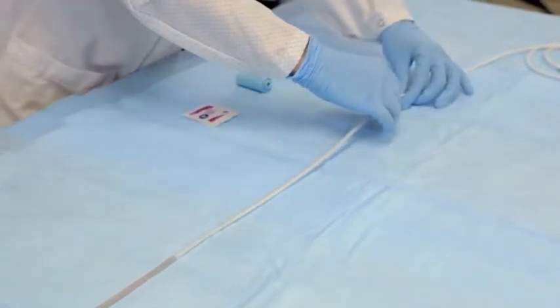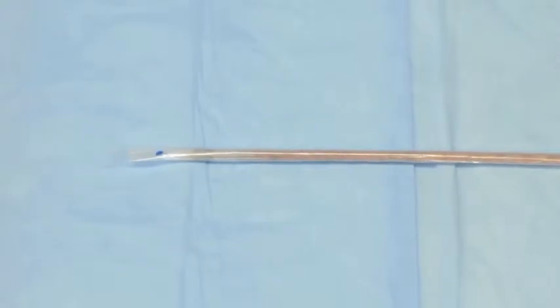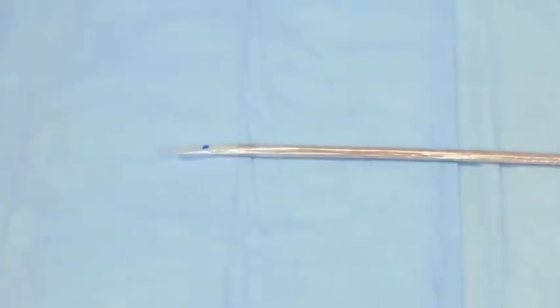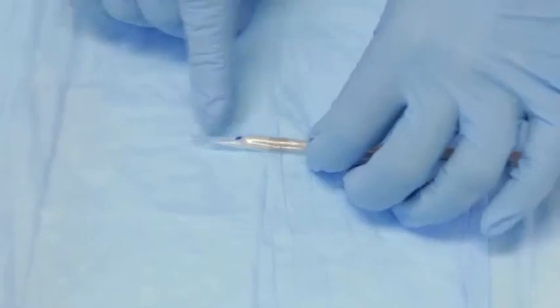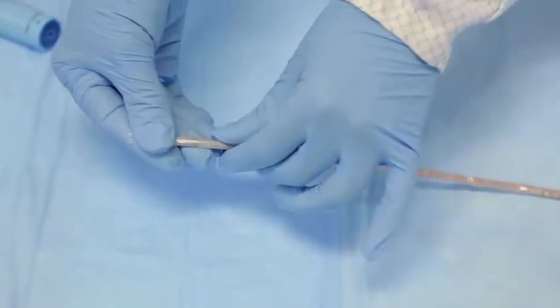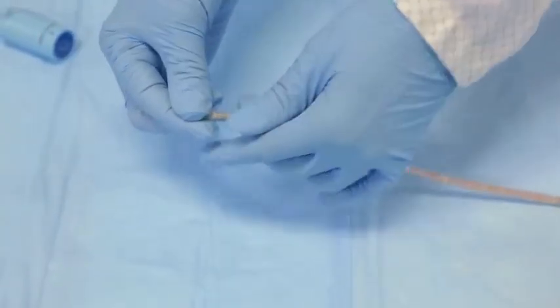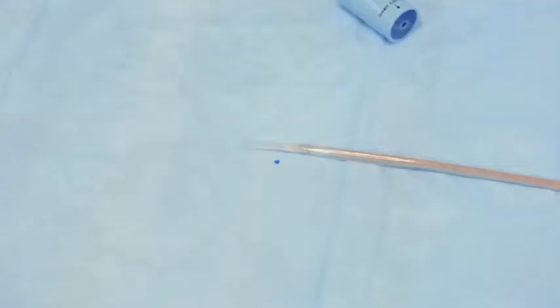Stop when the catheter reaches the blue dot near the distal end of the ManoShield. There will be some slack sheath at the end. Pinch the slack sheath tip to remove all air and fold the tip of the sheath back over the blue dot. It is not an issue if the blue dot falls off.